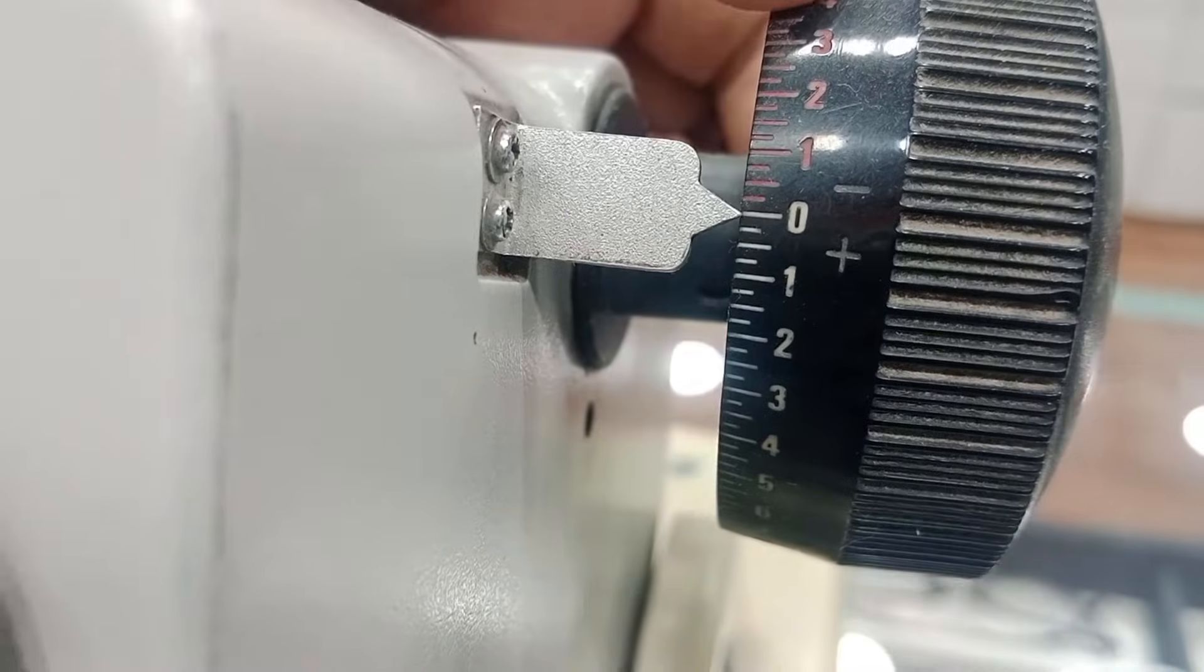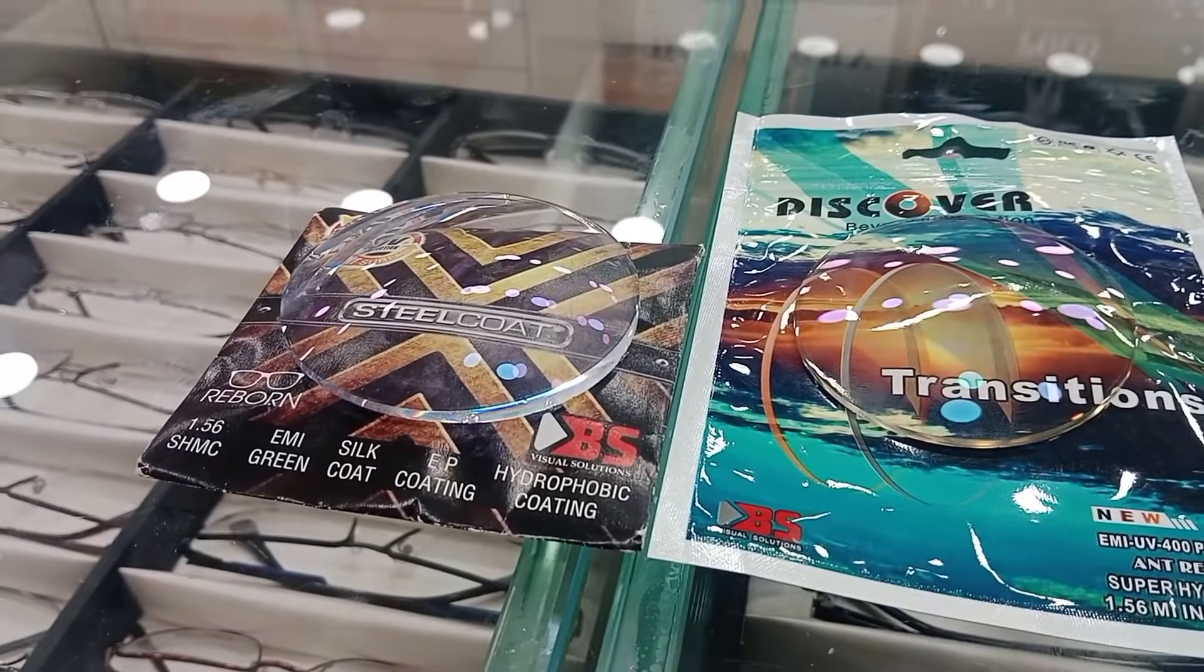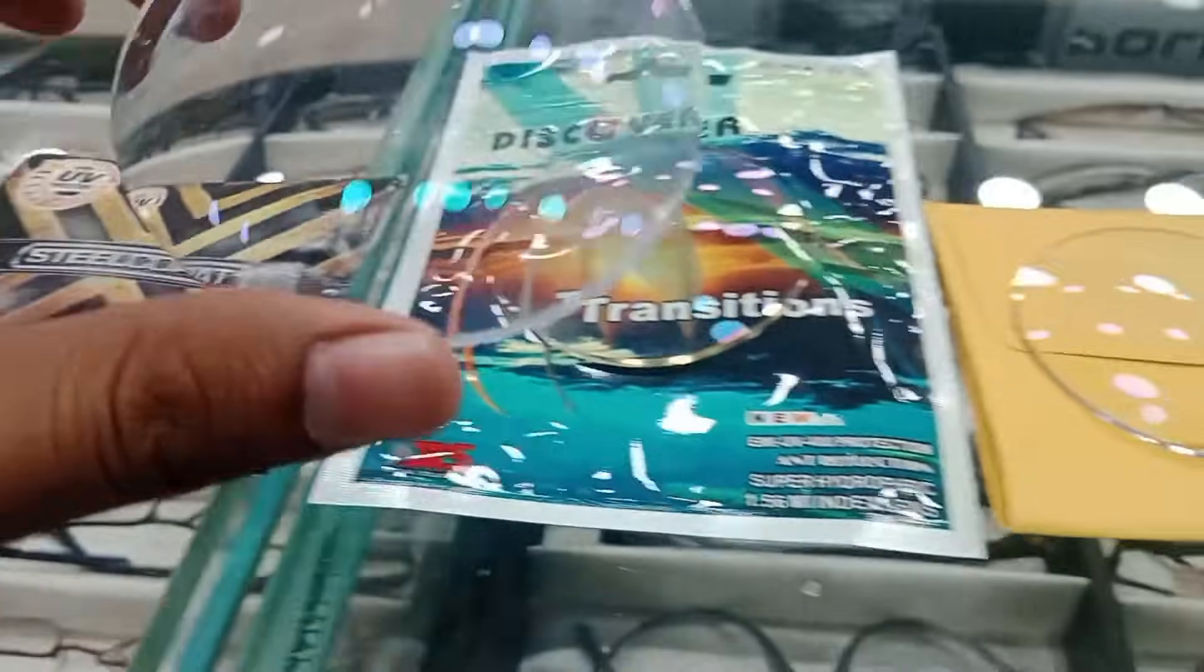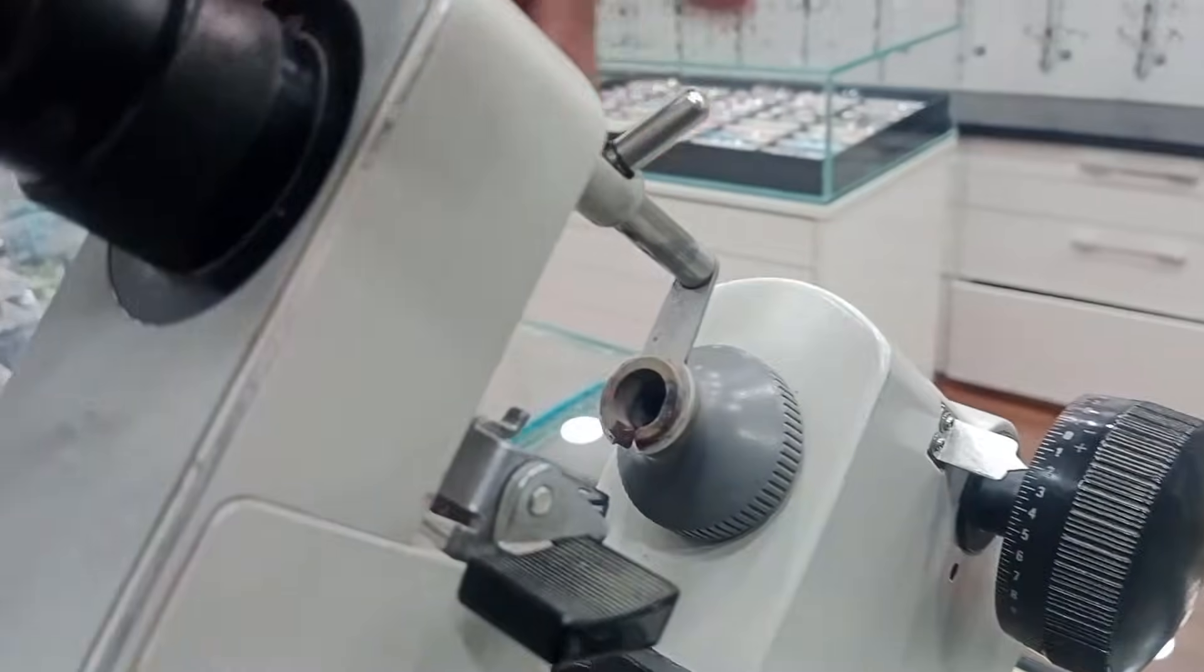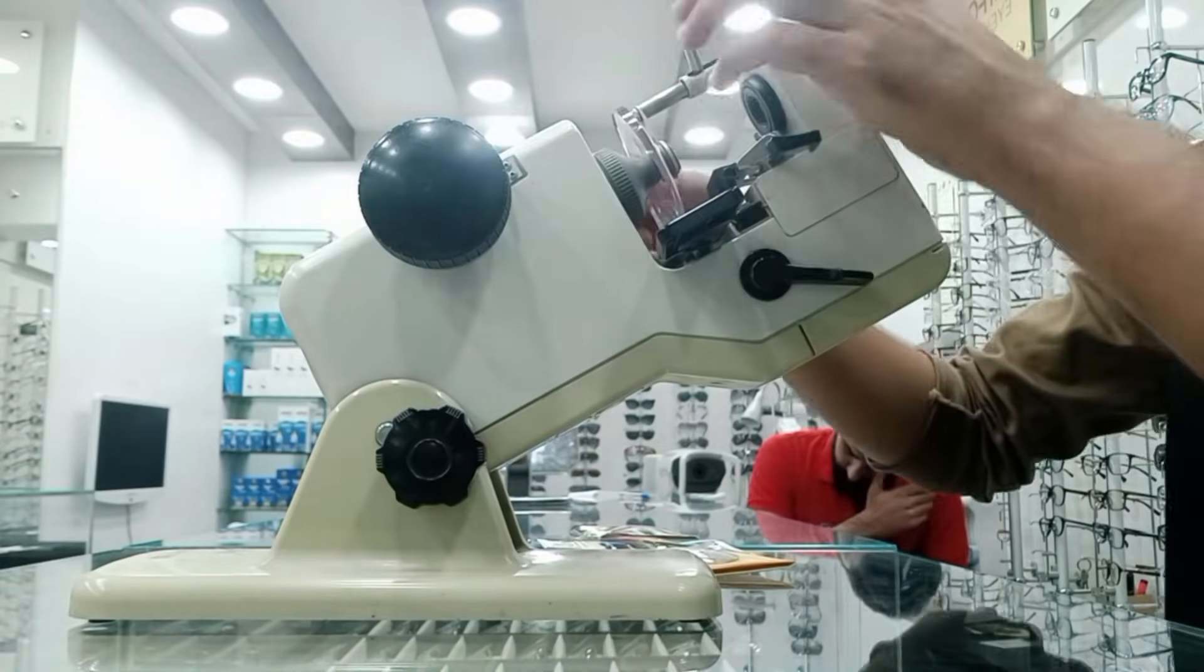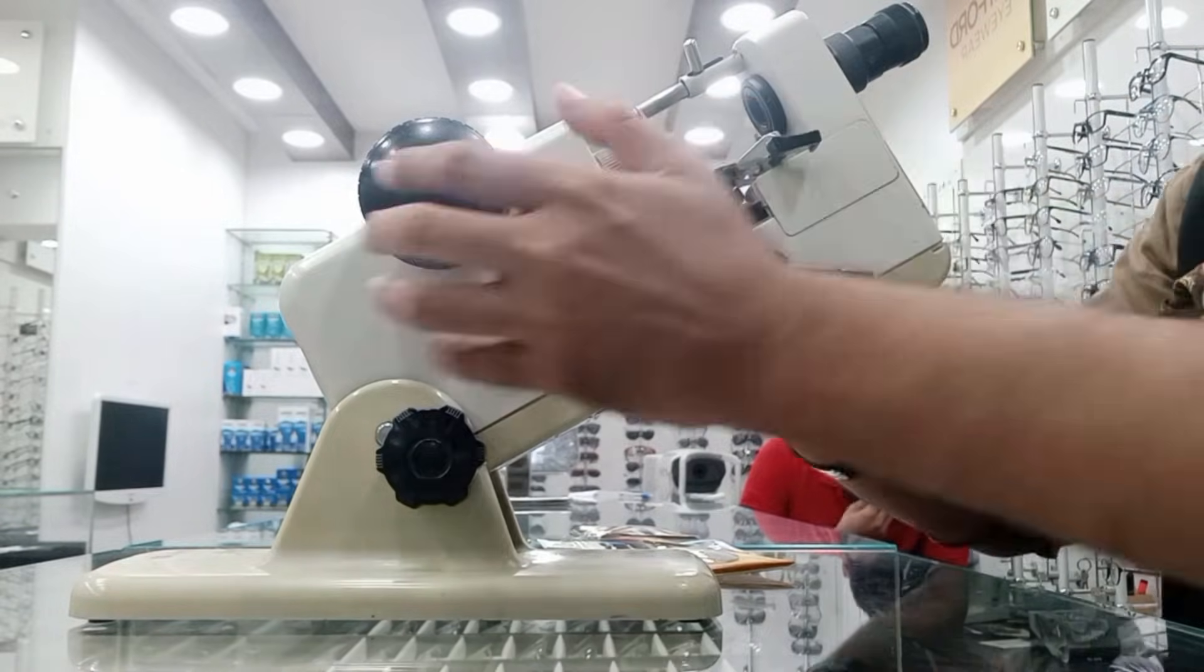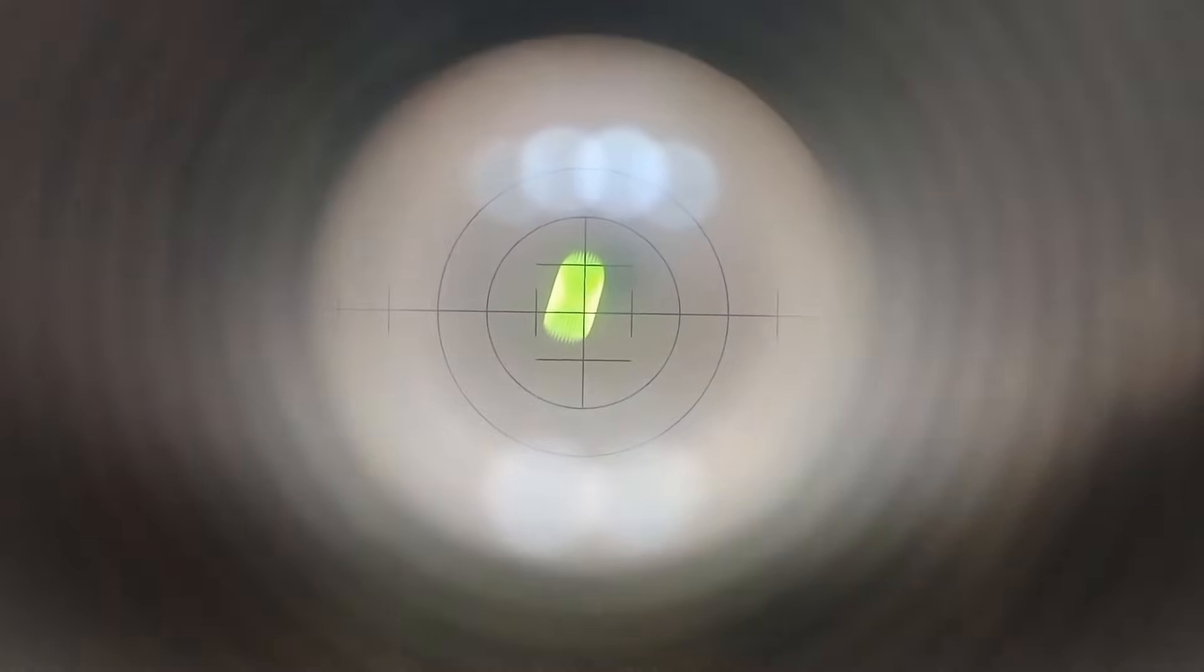So it's at zero. We have different types of lenses with unknown powers. Let's take one lens. We don't know if this is spherical, cylinder, or sphero-cylinder. We will adjust our blank with unknown power in the lensometer. So we will start. This illuminated bar we have to clear by rotating the power dial.